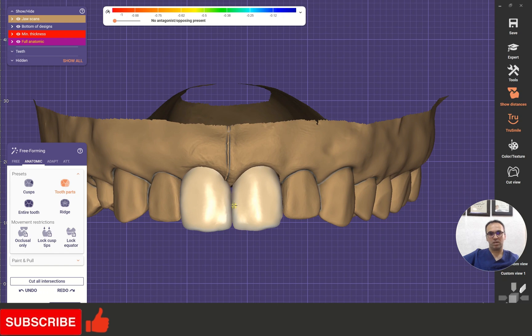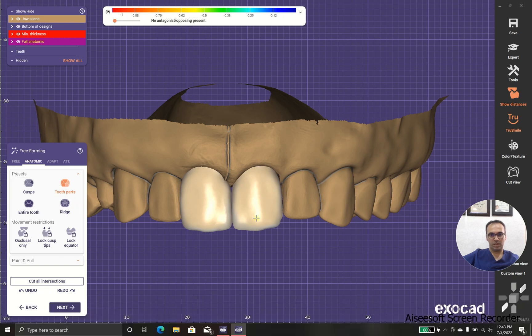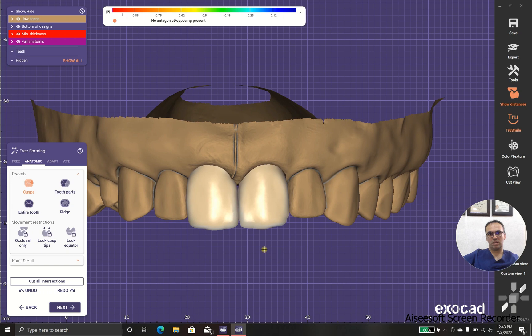This looks almost the same line. As you can see, I want to play with this line angle over here so they look alike.